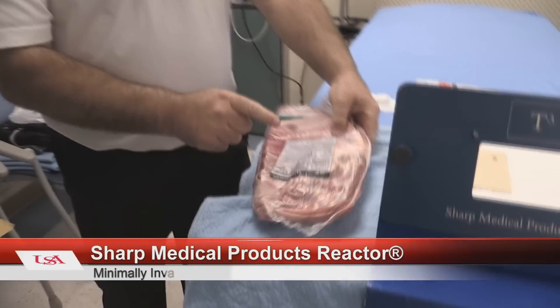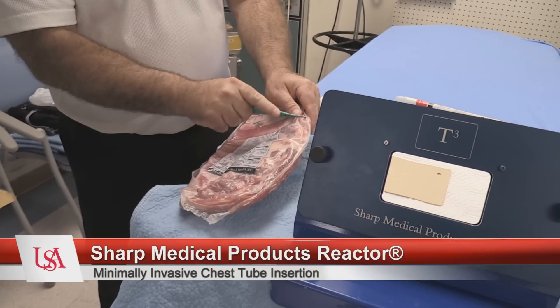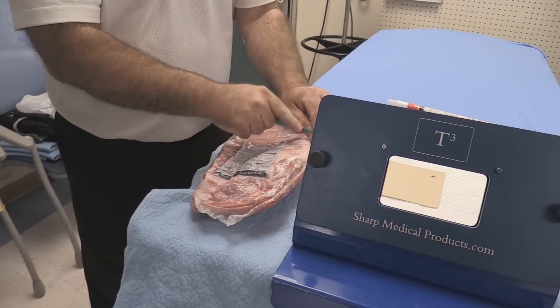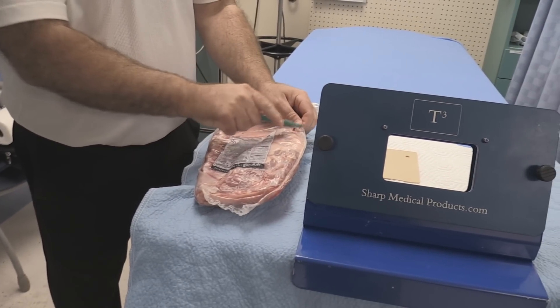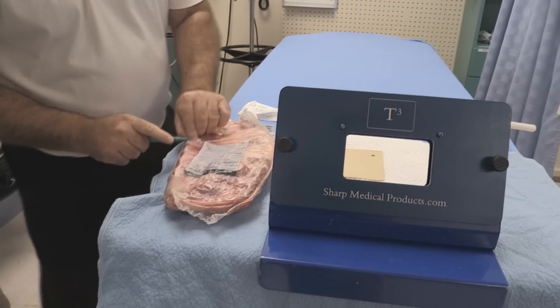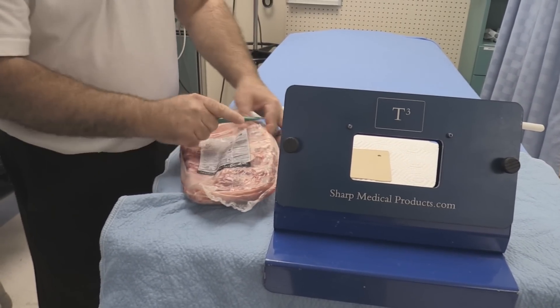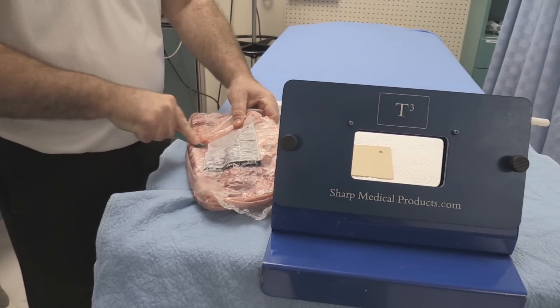I'm going to put the ribs in five-rib sections. I'll cut open the sealed pack here. I usually use St. Louis style ribs because they're the flattest to go in between the pieces of metal — the plates on the device. Then I'll cut that five-rib section off. Be careful not to cut yourself.